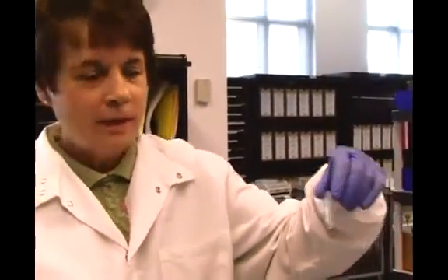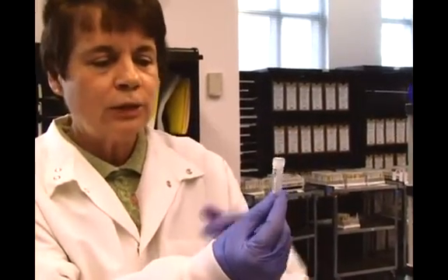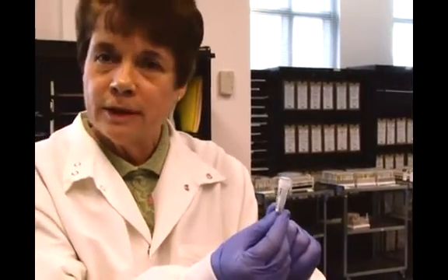Once we're at this stage, that whole pipetting process is very slow. It takes about three and a half hours just to pipette. Once we're in our little Sarsted or test tube here, then at this point it becomes a manual test.